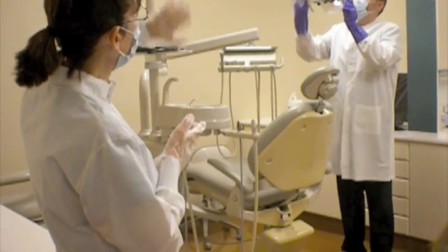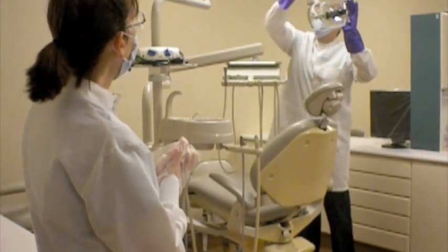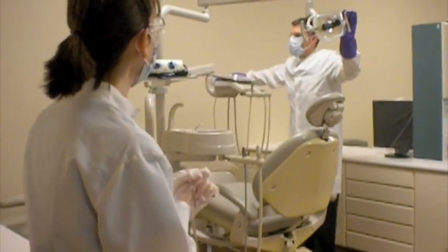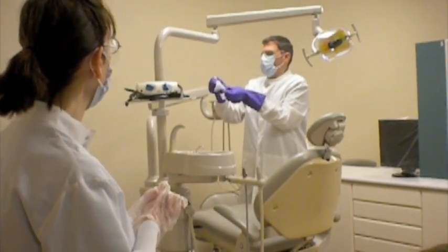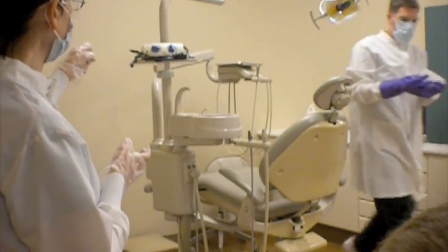And see how he's pushing now up and away from the patient. So we're moving now along the light pole, back and away from the patient. And long sweeping strokes. See those long sweeping strokes? They're more effective in terms of time management as well as effectiveness of removal. So continuing on to the light pole and then over to the ultrasonic unit on the other side.